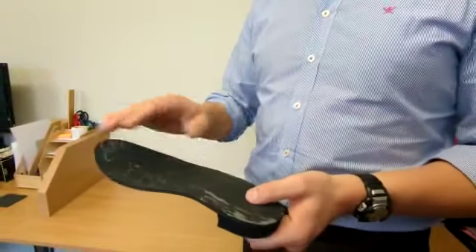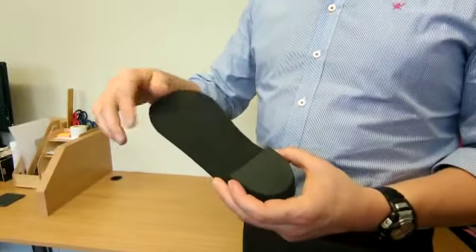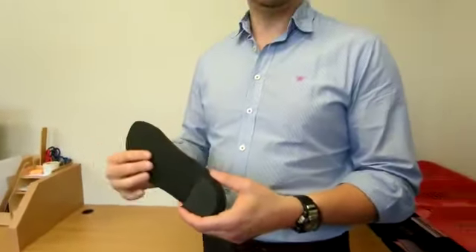For any of those reasons — the shiny, the squishy, or the potential tearing — the device can be refurbished; it doesn't necessarily need replacing.